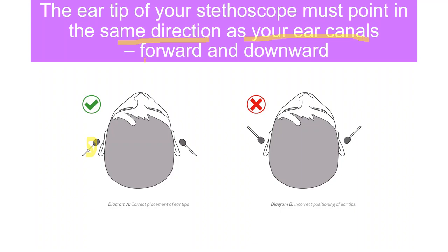Here you can see the ear tip is pointing forward and downward, which is the correct method of placing the ear tips on the ear. This is the wrong way. It shouldn't be placed in the opposite direction. That is wrong.